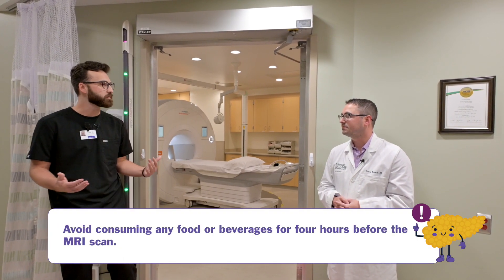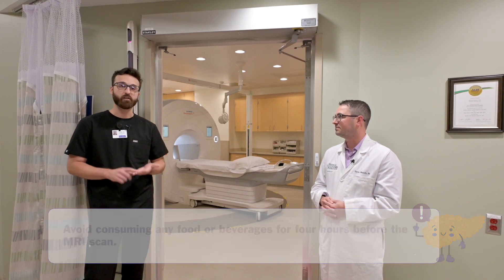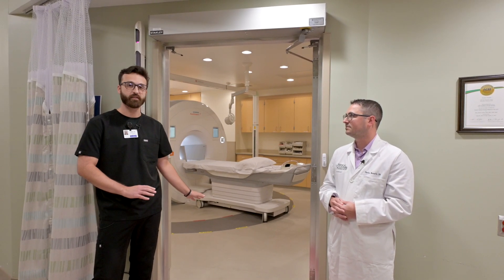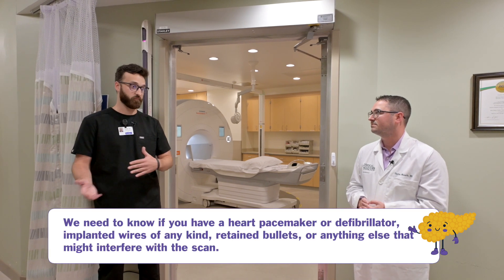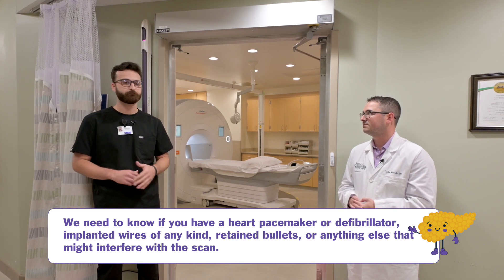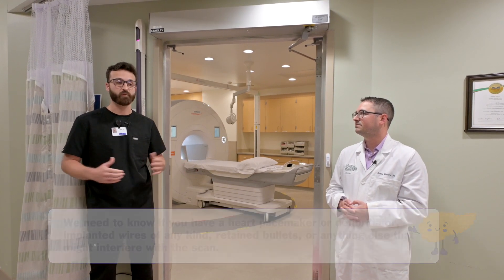For MRI, we'll always have a patient be NPO — nothing to eat or drink for four hours prior to the exam. We always have them fill out a questionnaire screening form to make sure they're safe to go into the MRI environment. That can also be done via MyChart prior to being scheduled, just so we know they're safe to enter the scanner. Safety is the number one priority. We look for things like pacemakers, defibrillators, cardiac stimulators, wires, any implanted devices, gunshot wounds, or shrapnel — anything inside the body that might contraindicate MRI. All of this is triaged to make sure they're safe.